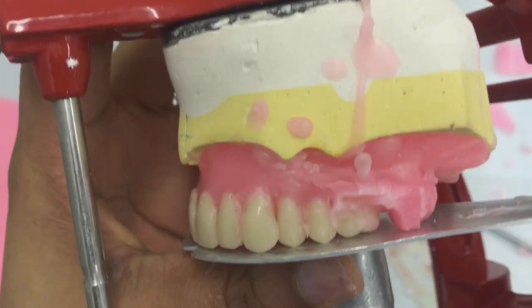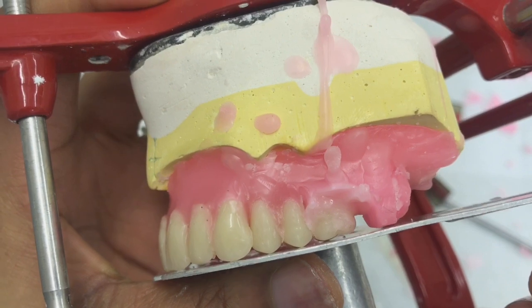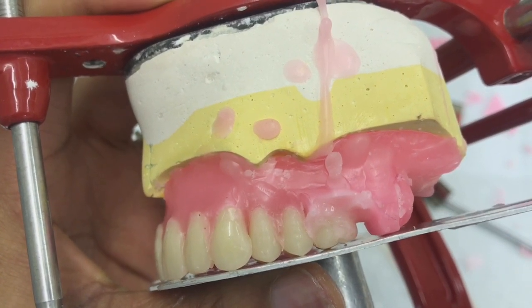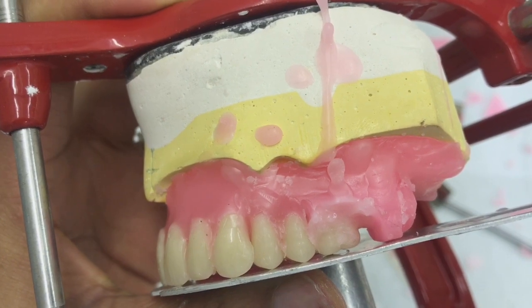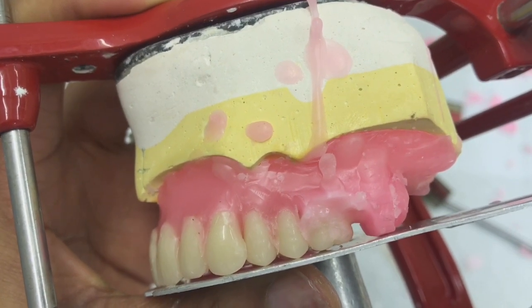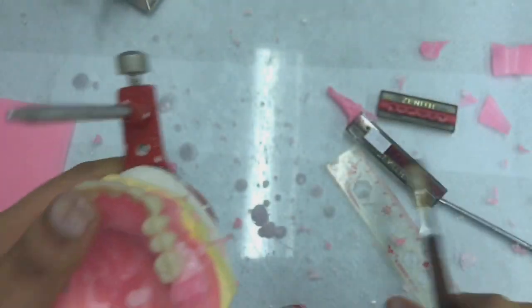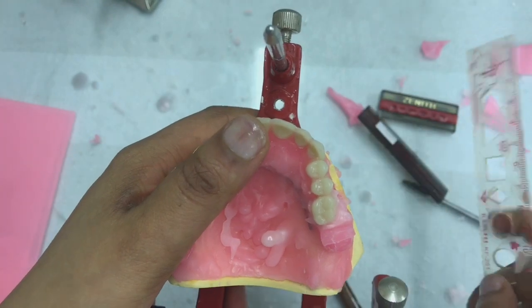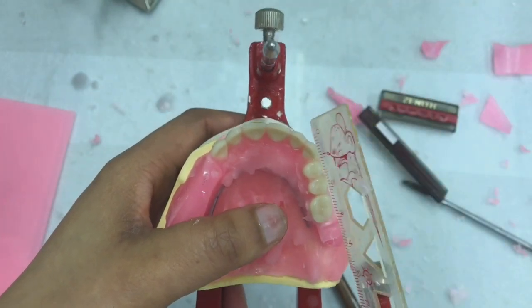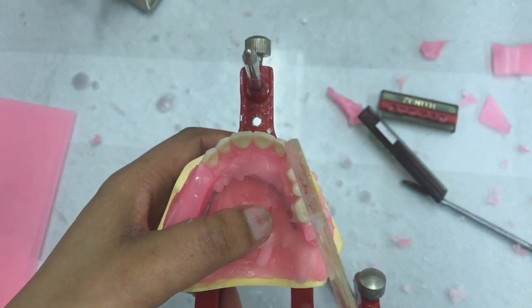Okay, so there we go. I don't know if you're going to be able to see it. So there we go. Can you see? It's only my mesiolingual cusp that is touching the table, while all the other cusps are off the table, and there's a slight inclination. Okay, so after I have achieved that, I need to just double check that my teeth are still positioned correctly. Let's just see.